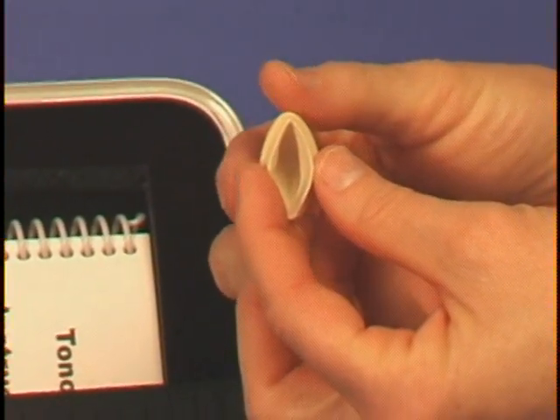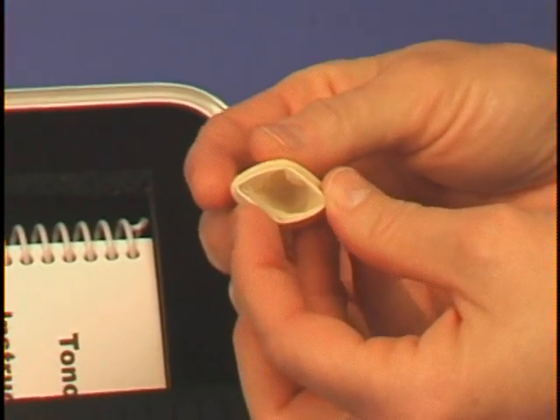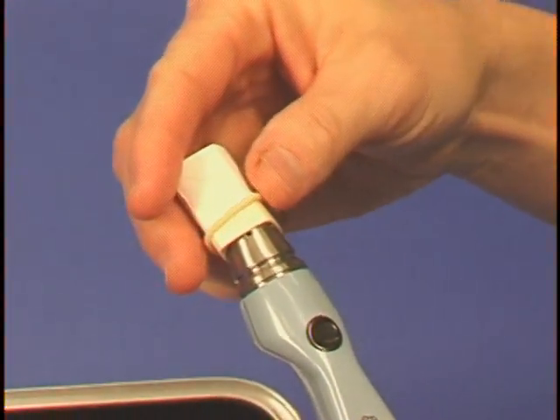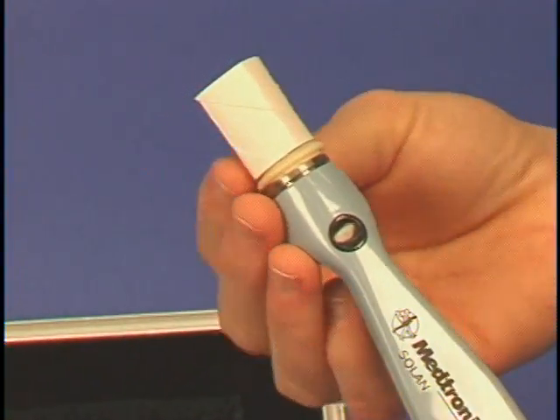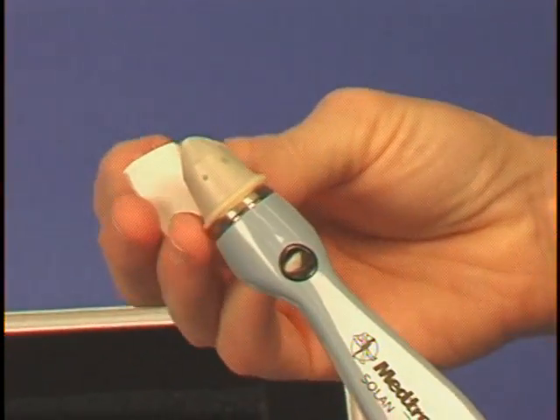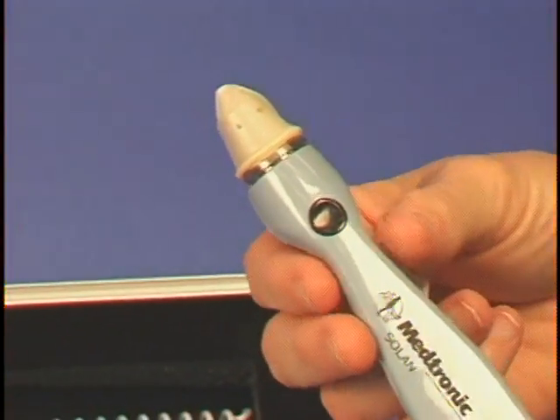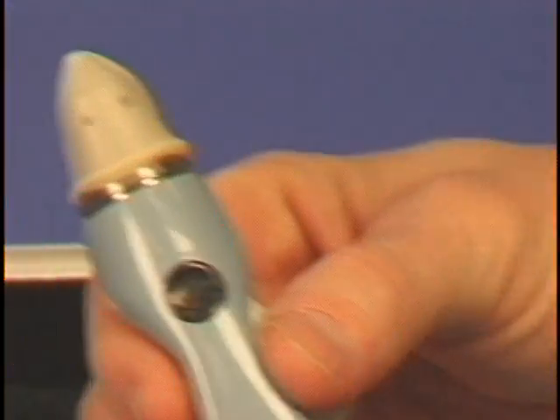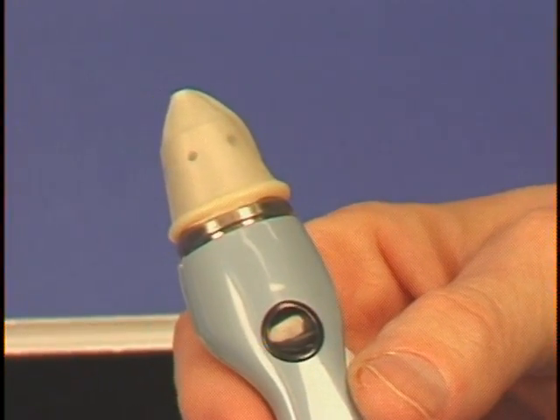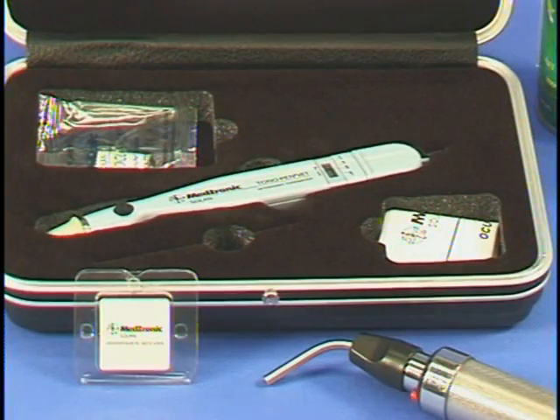The protective tono cover is placed over the transducer tip as shown. The cover should lay flat over the transducer tip, but not be pulled so tight as to inhibit movement of the transducer tip. Tono covers should be replaced daily or between patients with potential infectious disease such as herpes virus, chlamydia, or ulcerative keratitis. In addition, the Tono-Pen should be stored in its case with a tono cover on. The Tono-Pen is now ready to use.